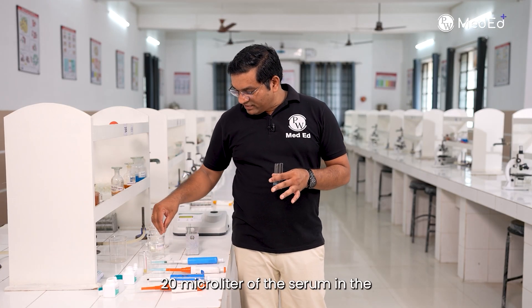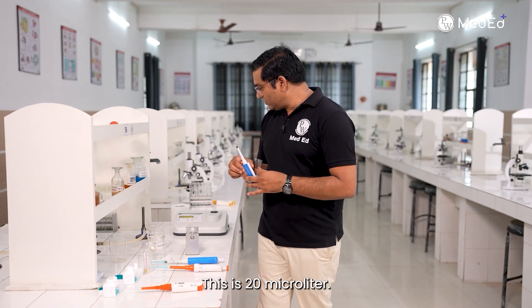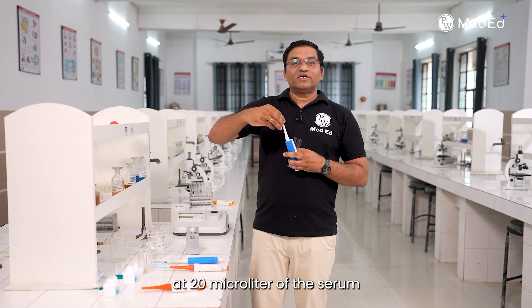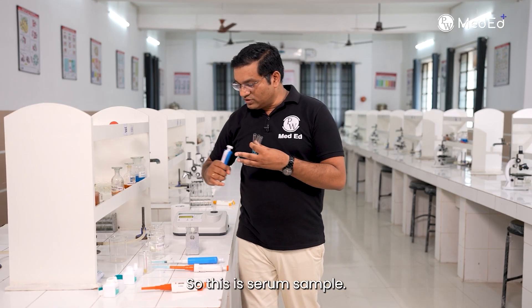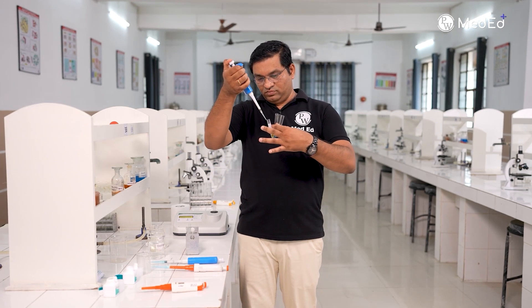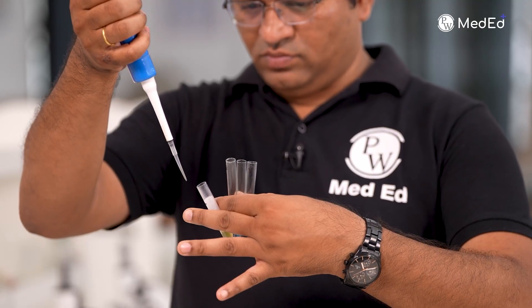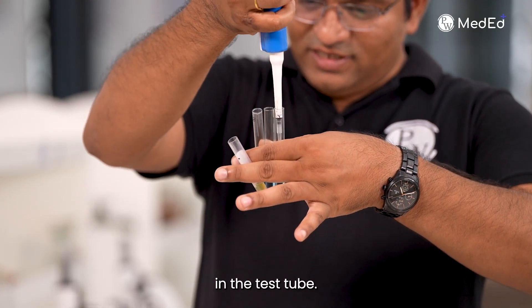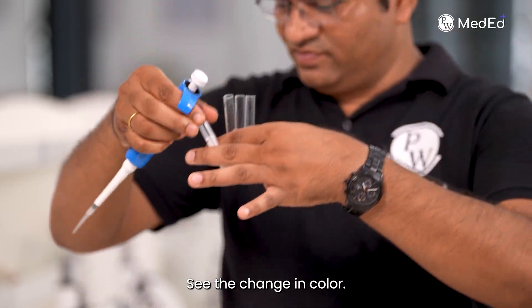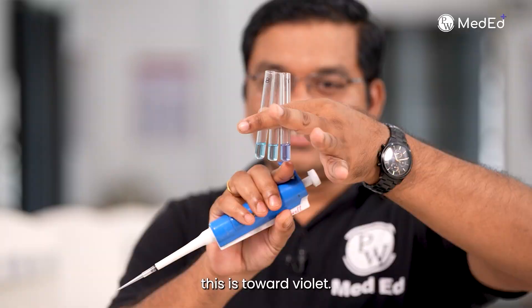Add 20 microlitres of the serum in the test tube. This is the serum sample — 20 microlitres in the test tube. See the change in colour — it is bluish, towards violet.